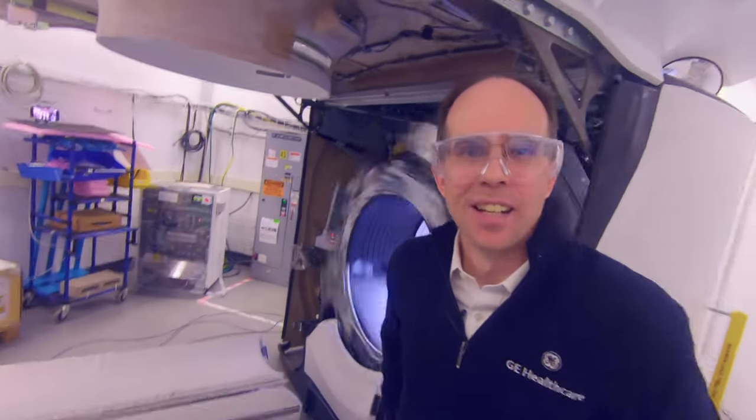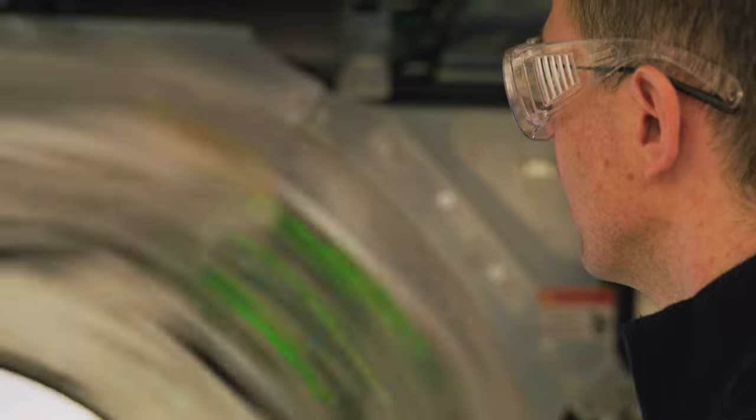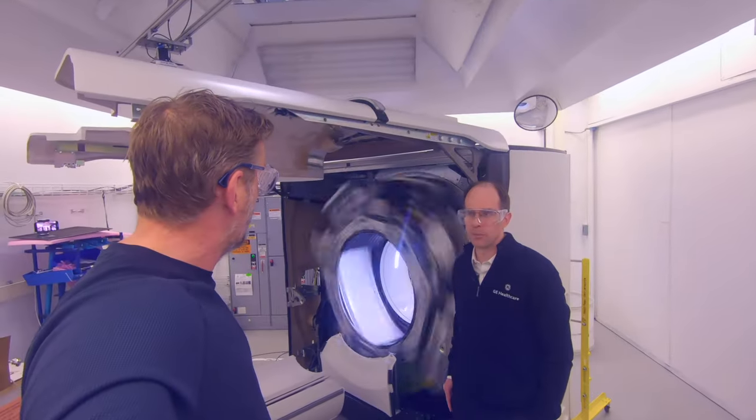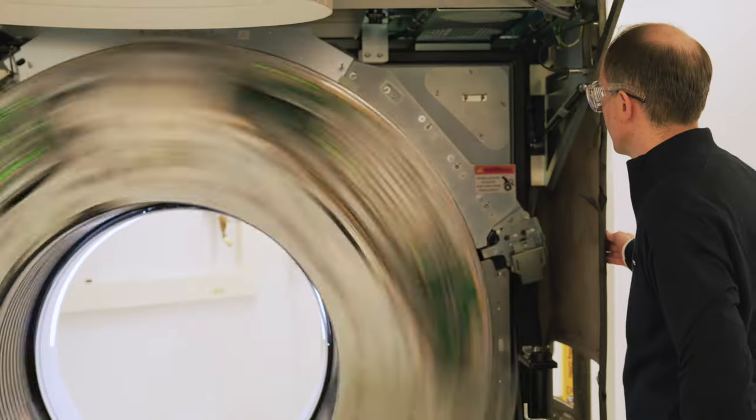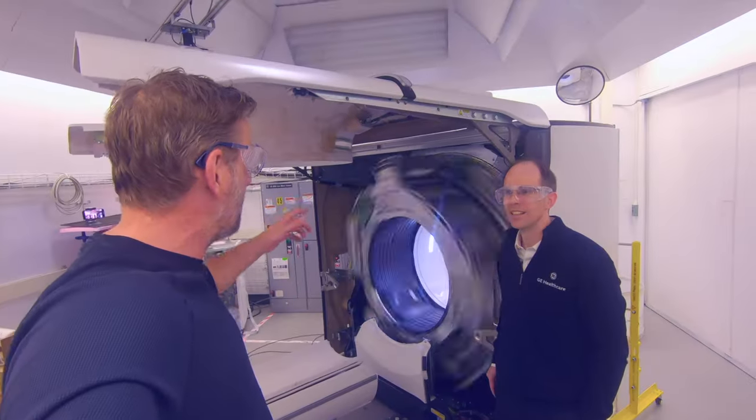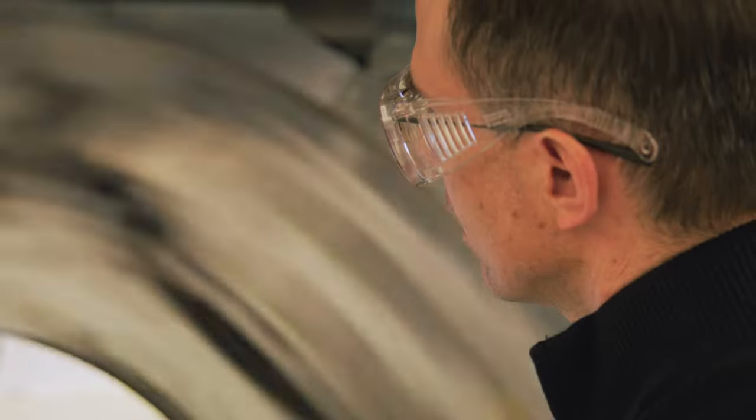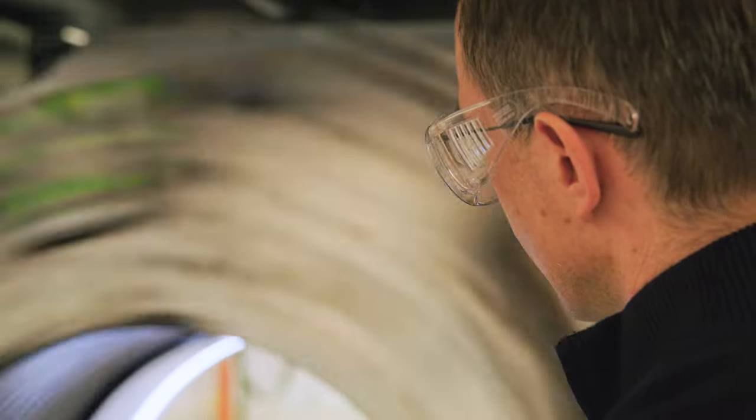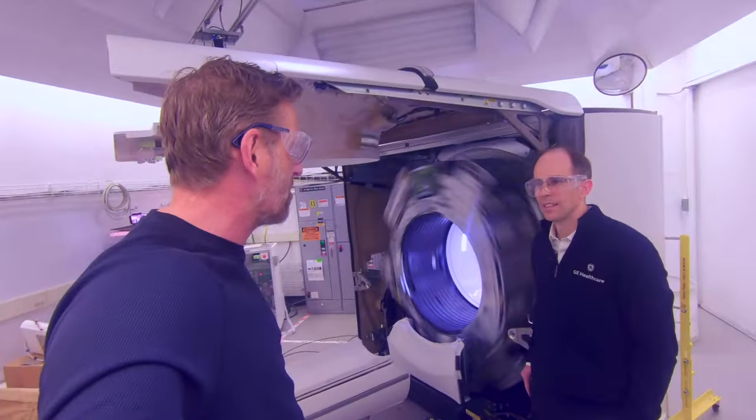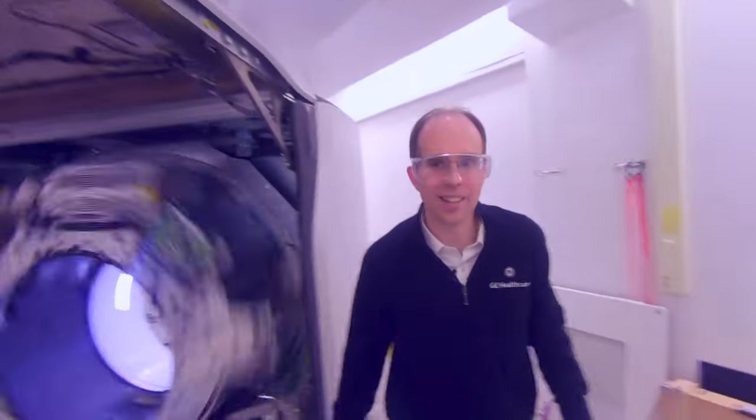How are you sir? Doing great, how are you doing? This is actually what happens when someone's inside it. Yeah, this is the inside of the Apex CT sitting here spinning away. The patient would be inside the bore and the covers would be closed up so they wouldn't see this. Maybe we can just stop the spin because I want to learn a little bit more, not just about deep silicon, but about what it takes to make a CT and what the challenges are.